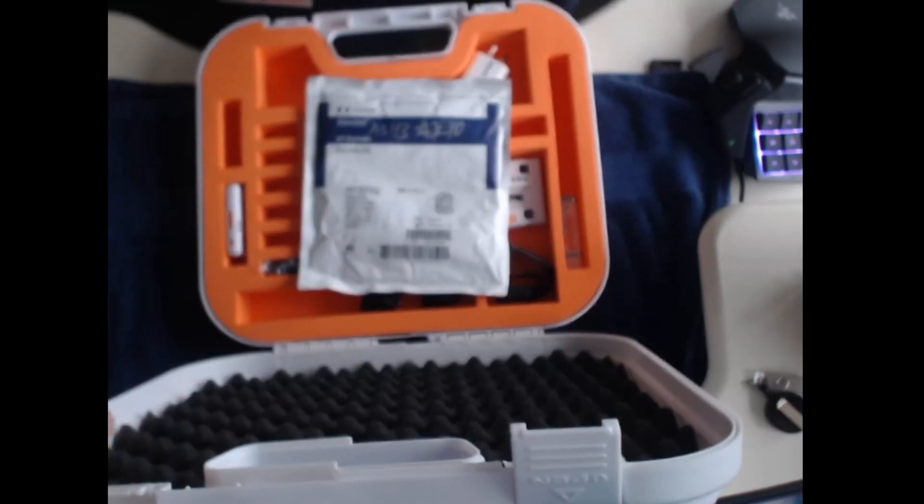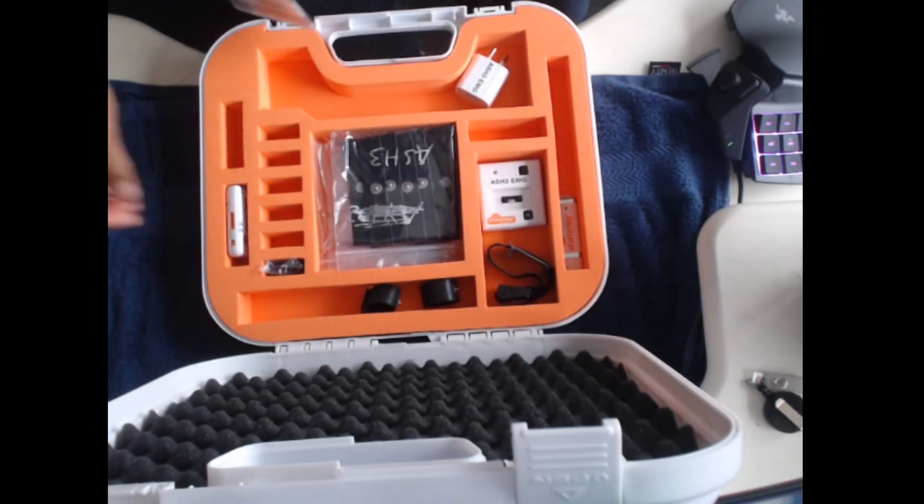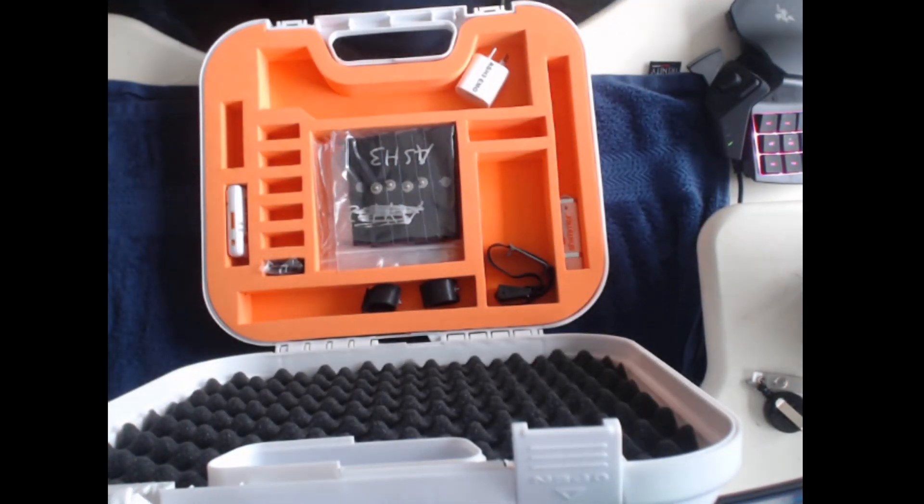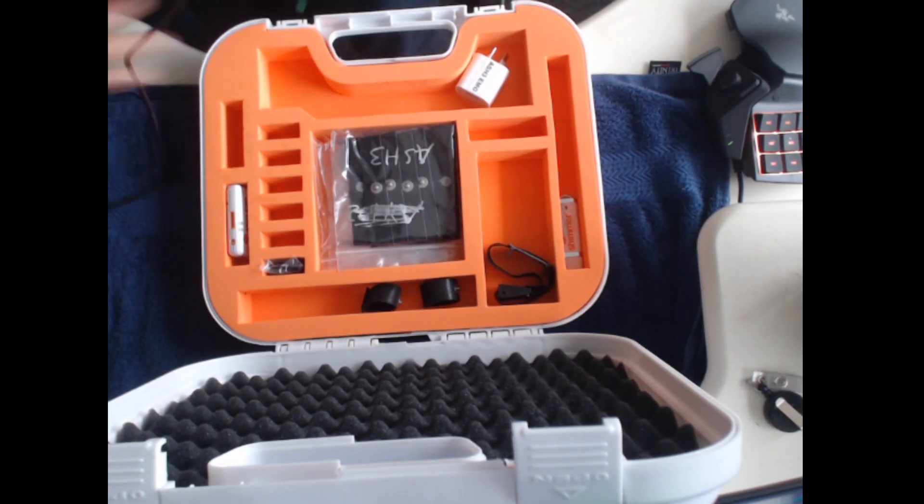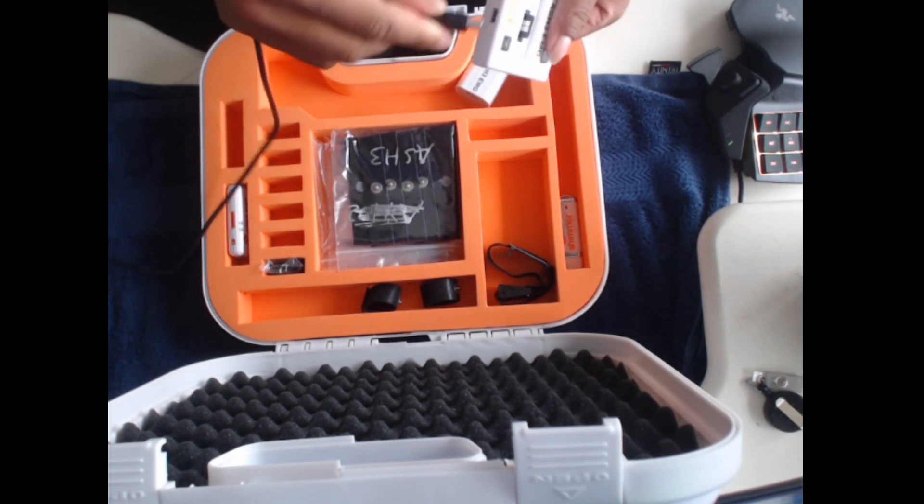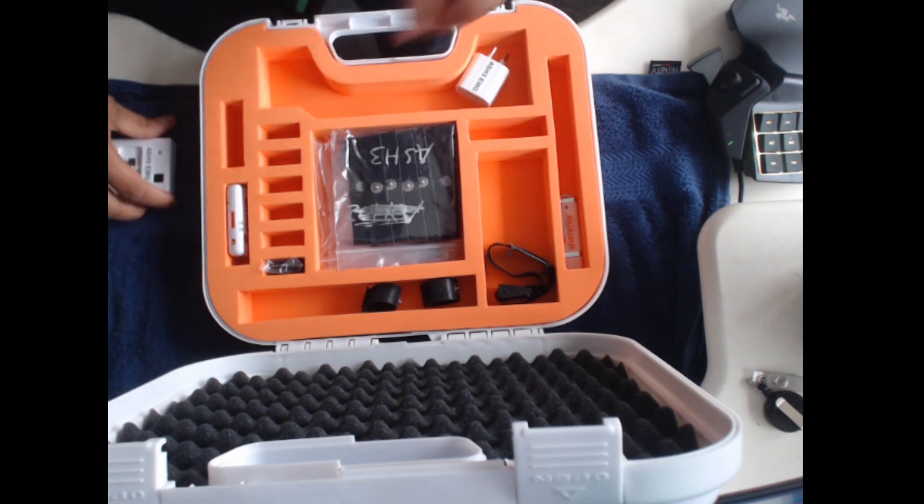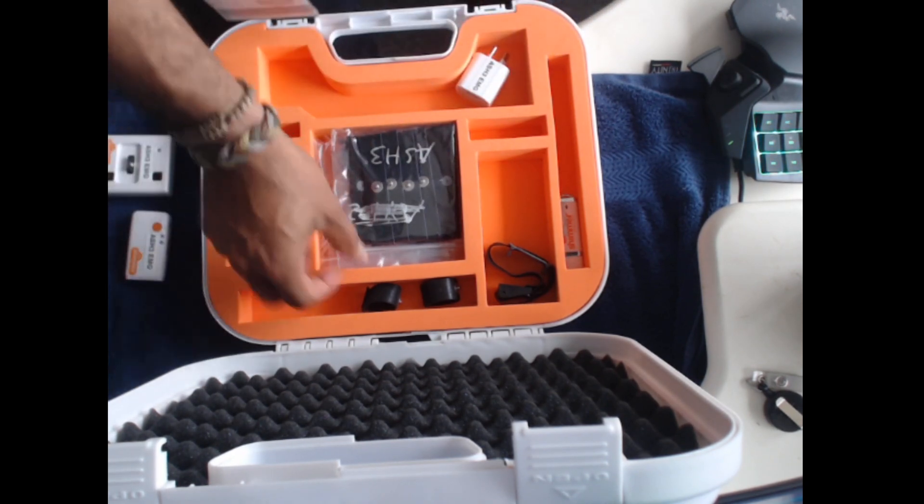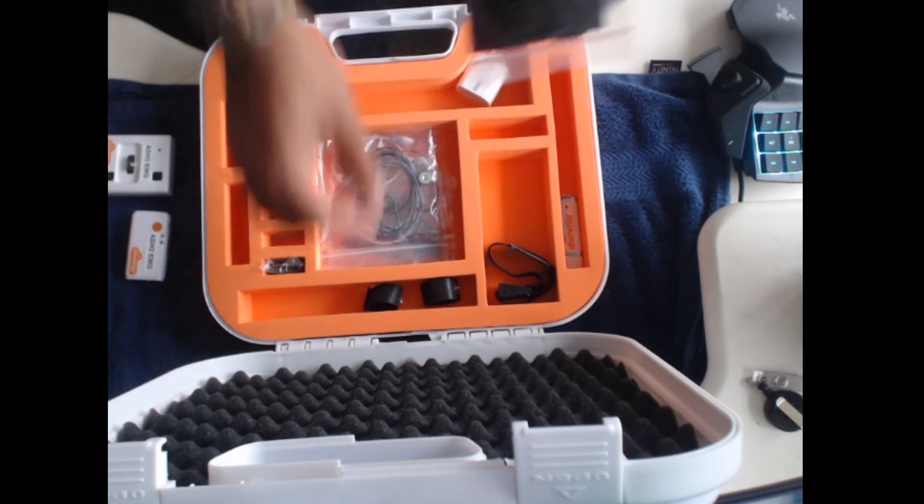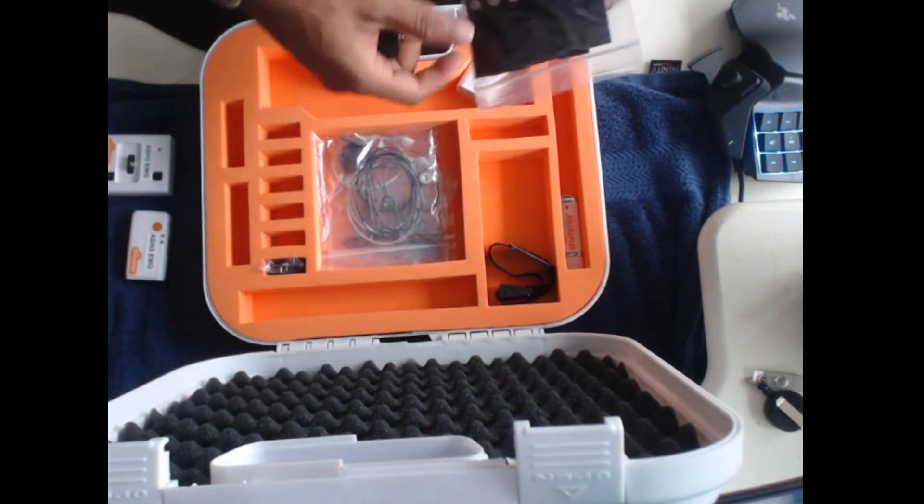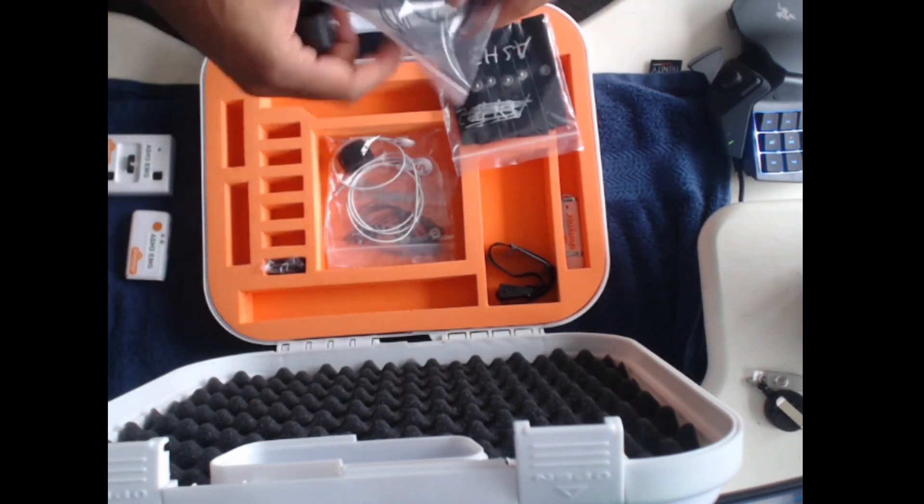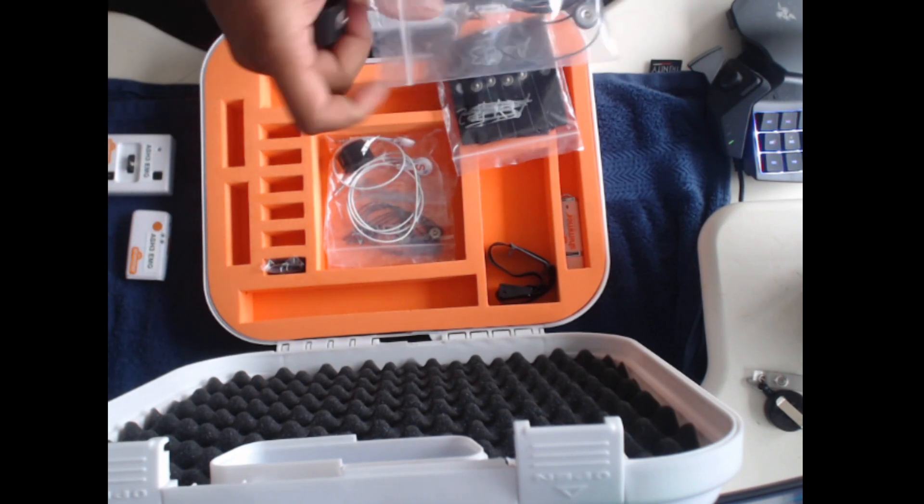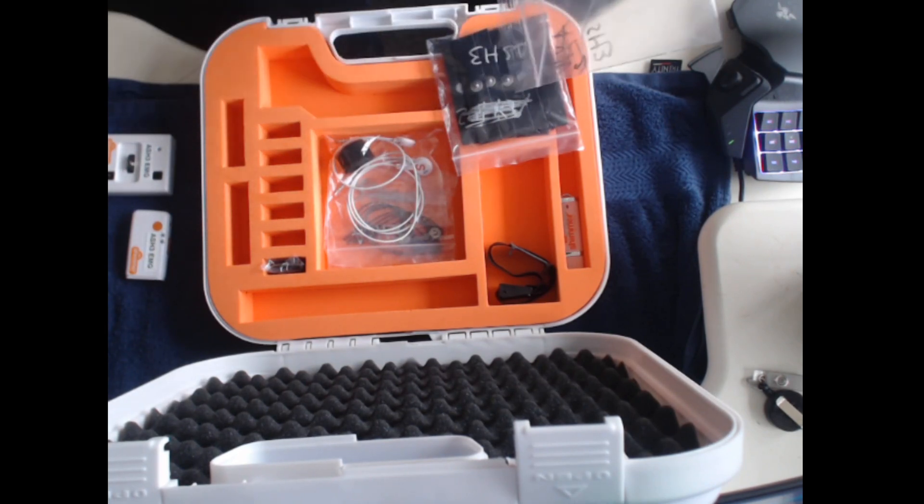Let's get started. In the box we have the Shimmer dock. We can use the Shimmer sensor attached to the dock via the USB connection to stream physiological data through either the Consensus app or the Shimmer Capture app. These are the GSR electrodes and the biophysical leads which plug into the Shimmer sensor.